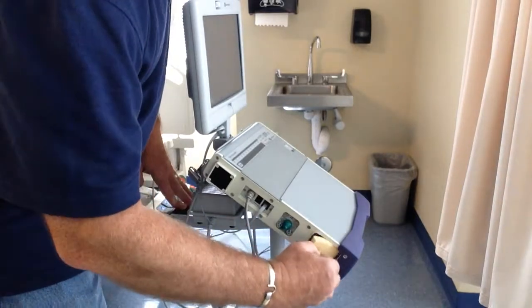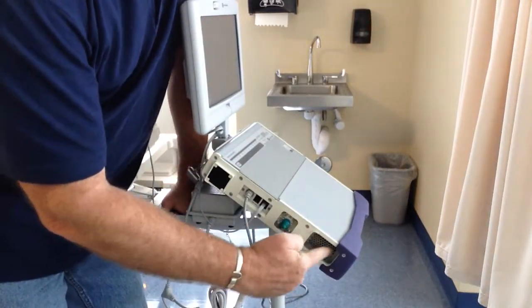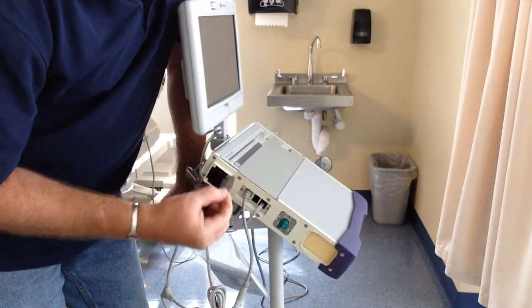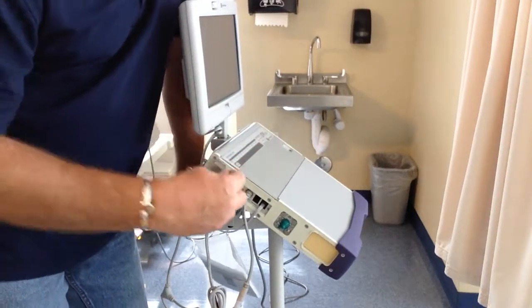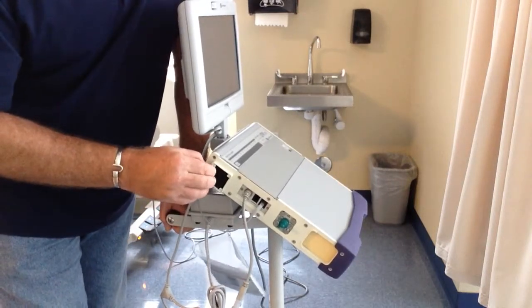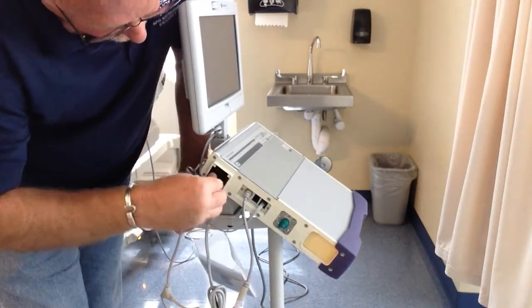This filter filters the gas — the breath — going to the patient. Between patients' usages, you need to wash this out with soapy water, rinse it out, and let it completely dry. You can see that without this, the patient would breathe in all the dust and debris. Here is a computer filter for the computer componentry. If this gets clogged up, you will start getting error codes because the computer componentry cannot cool off. This little plastic piece is very thin plastic — in the lab, do not take it out because it will break very easily.